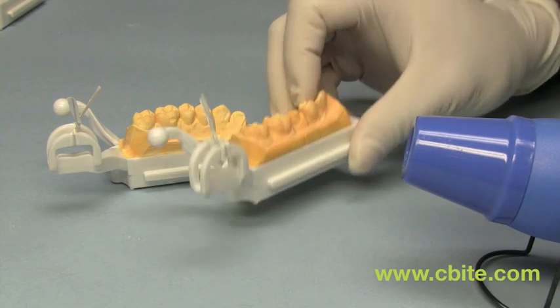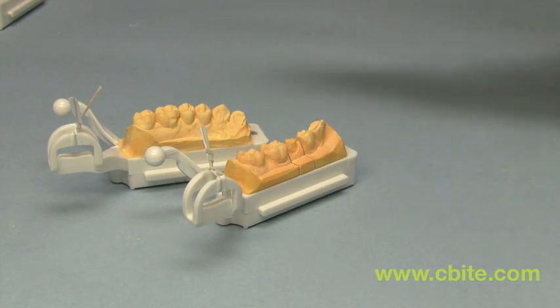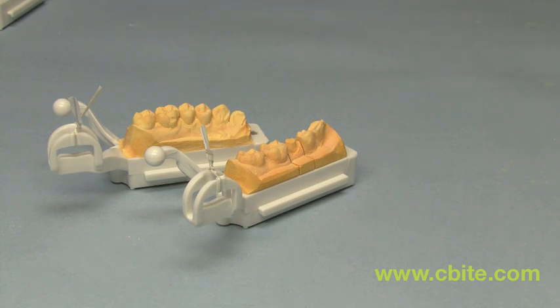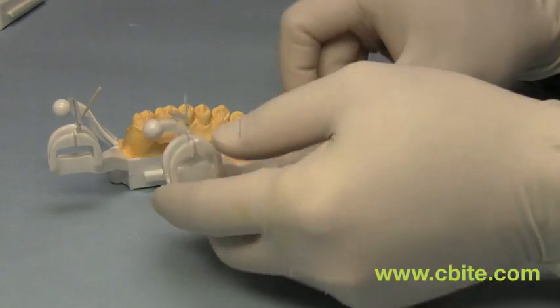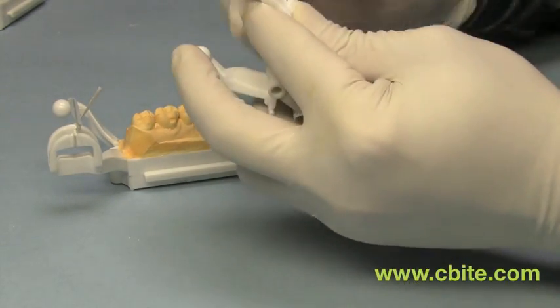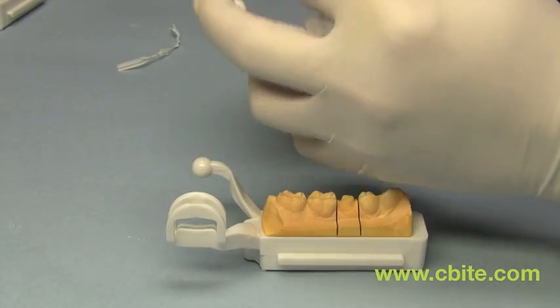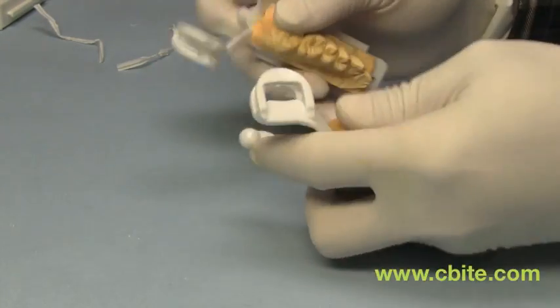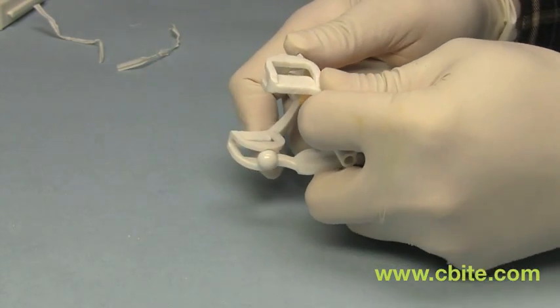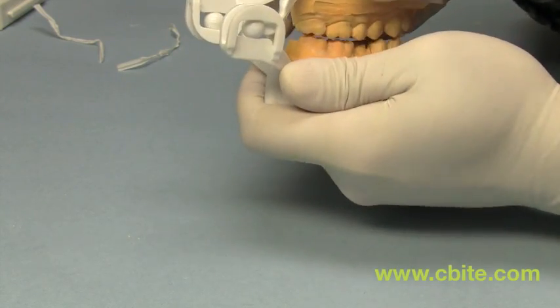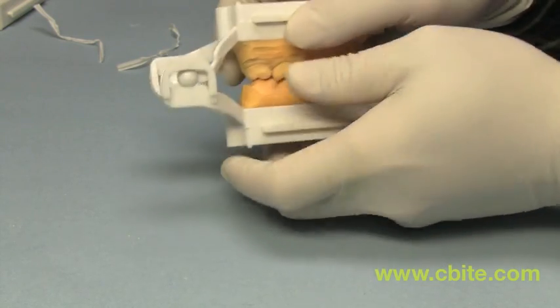Once it's done, set it and let it cool down. Once it's cooled down, just take off the twist ties. Put together. And now you should feel a tighter ball and clasp assembly.